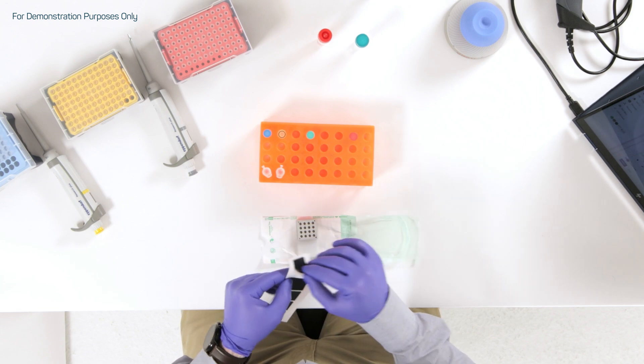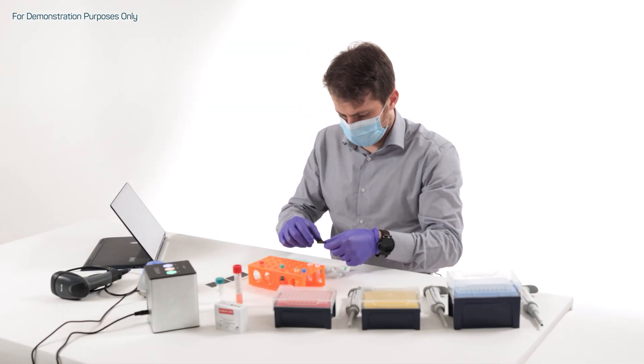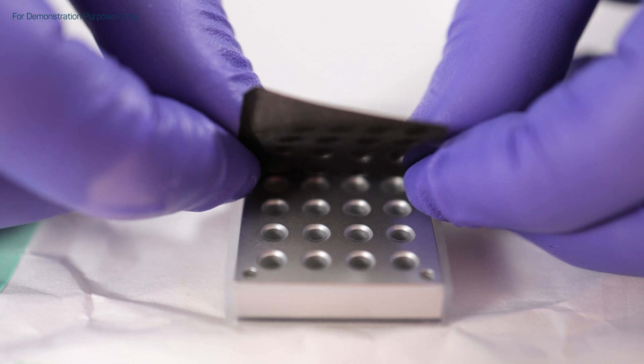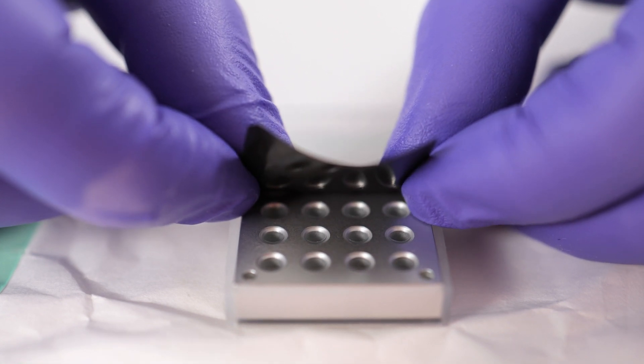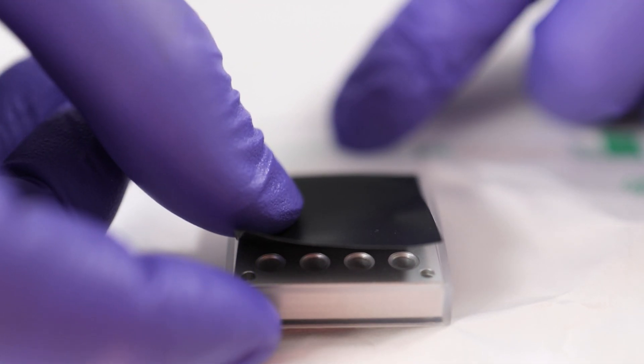When all the issued wells are loaded, the cartridge is sealed using the proprietary aluminum adhesive foil designed by HiRIS, which will grant thermal homogeneity during the whole analysis.